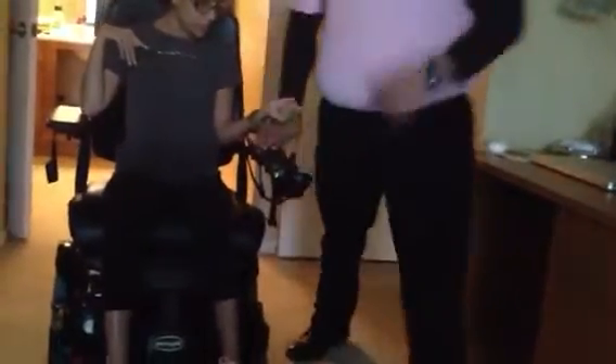Yes, and it would have to be an absolute severe emergency because you're not going to be able to push this up a ramp, up a hill, anything like that. It'll have handles on it, but it's still going to weigh about 400 pounds. This one is a little lighter, but I only push this manually in an emergency. All chairs have the ability to push manually — it's just whether or not you're going to be able to physically do it.